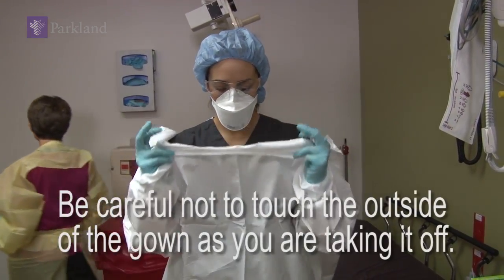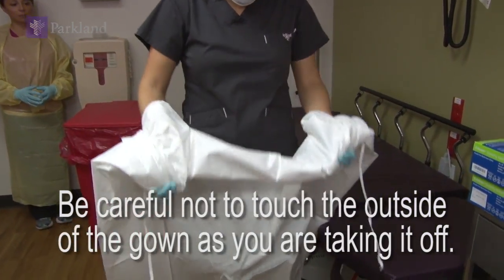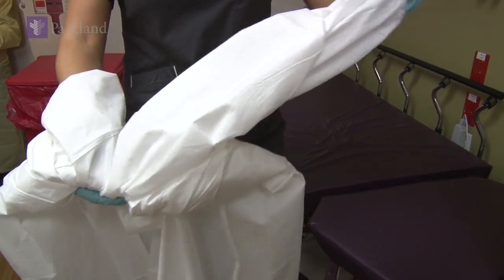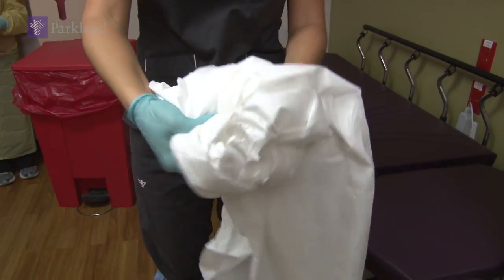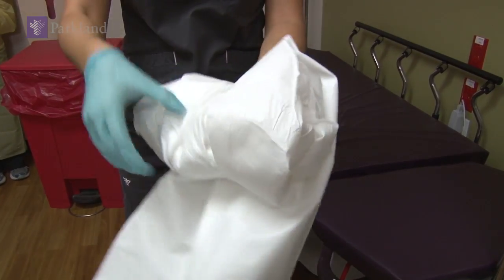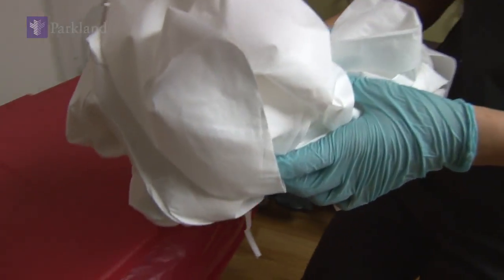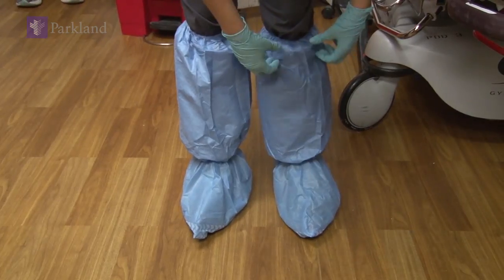Reach up to the shoulders and unroll the gown away from you, until you get to your wrist and waist area. Remove your arms from the gown, keeping your second, clean set of gloves on. Continue folding the gown inward onto itself and rolling it away from you, until it becomes manageably small enough to throw away.